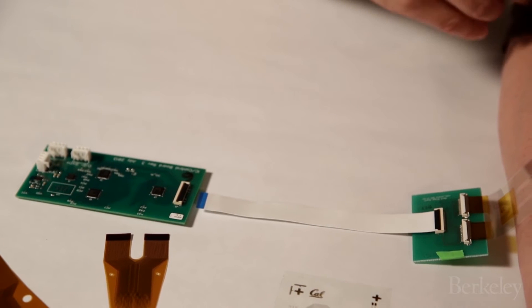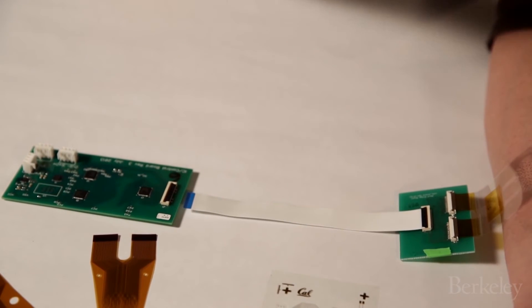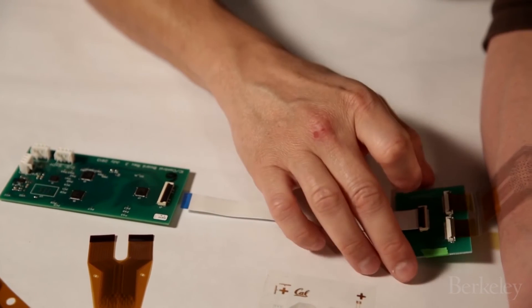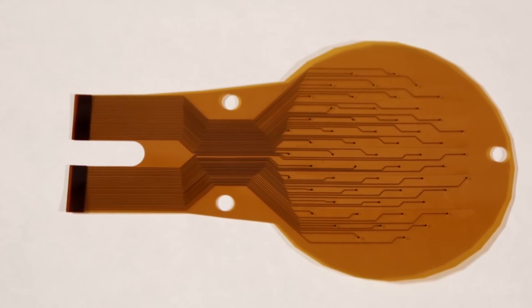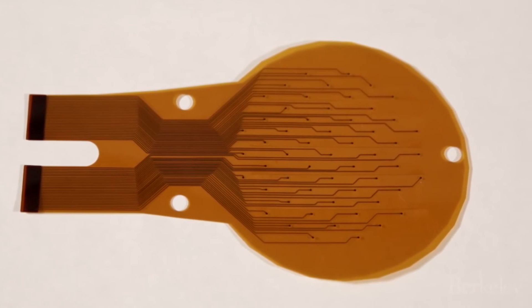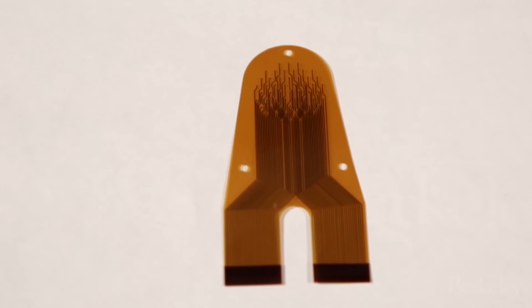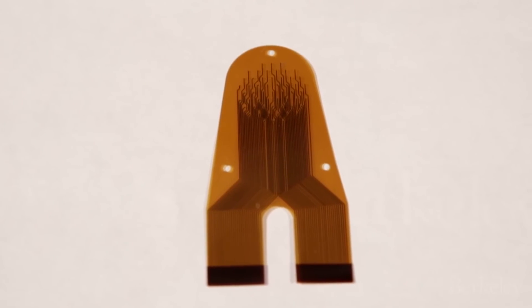All of this can be miniaturized into something that would fit into a pen thermometer, very small. Something could be carried around by a nurse or worked into the wound dressing itself. As technology is more and more miniaturized, as we learn more about these responses that the body has, we're able to build bandages that are actually very intelligent. So you can imagine a future, which is very close, where the bandage that you put on or the dressing that a surgeon or physician might put on would actually be able to report a lot of interesting information about the progress of that wound.